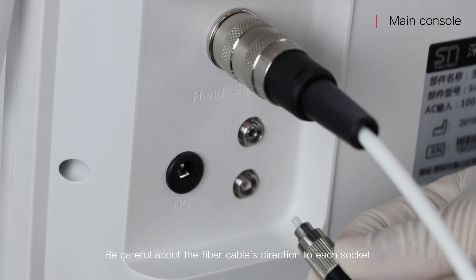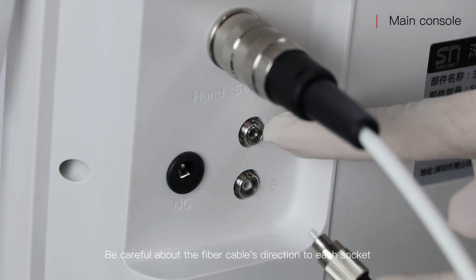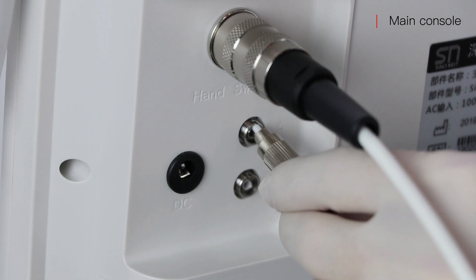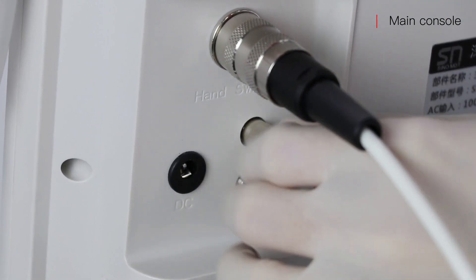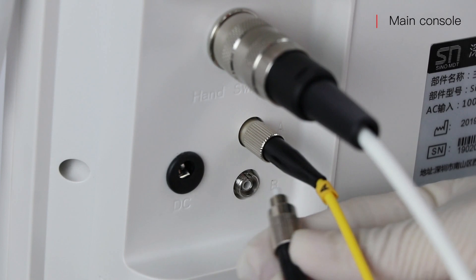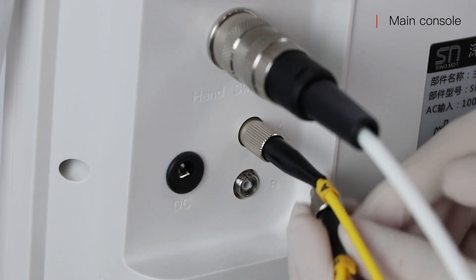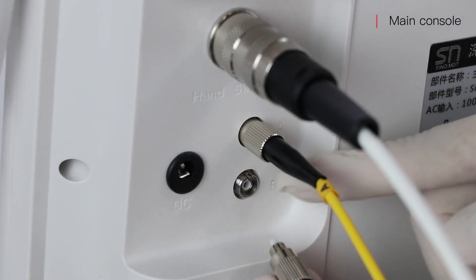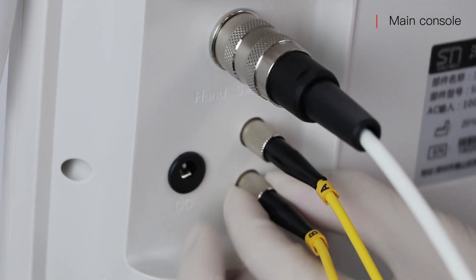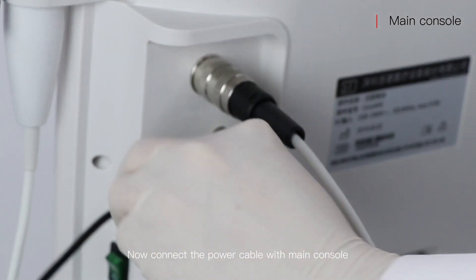Be careful about the fiber cable's direction to each socket, the same as for channel B. Now connect the power cable with the main console.